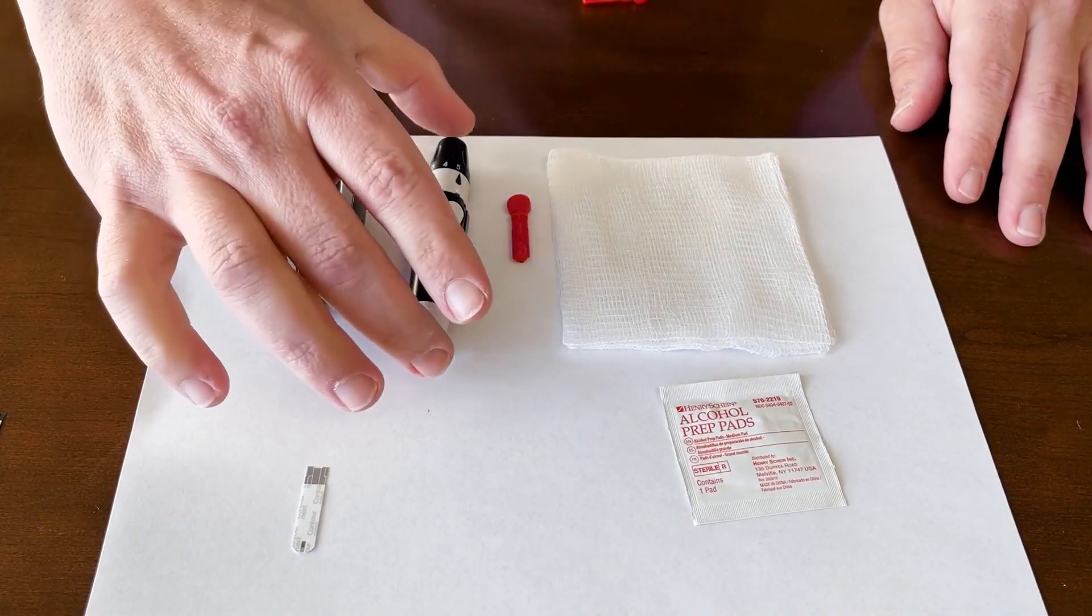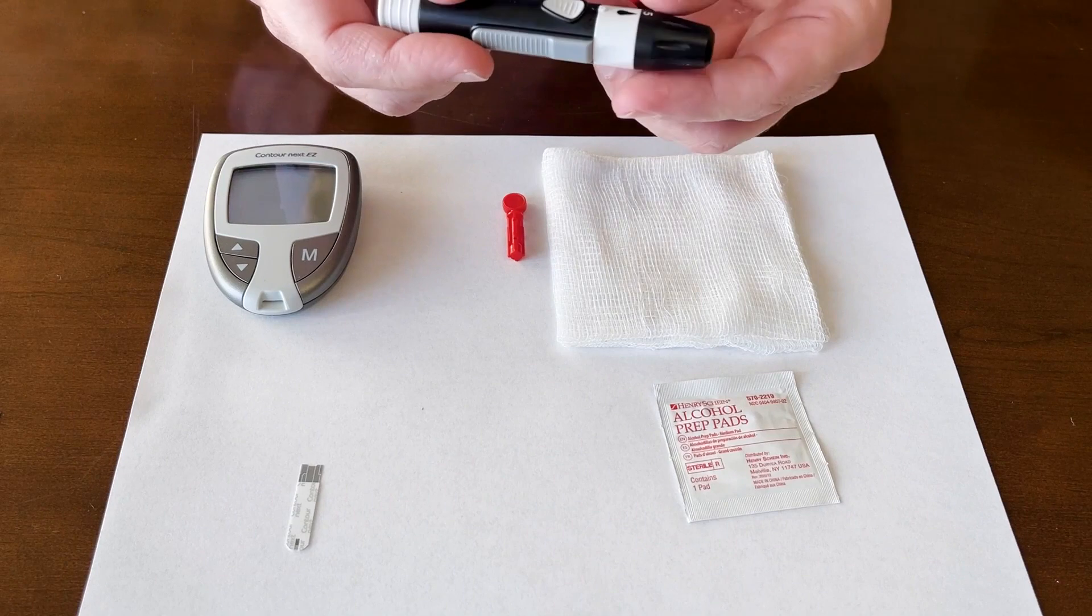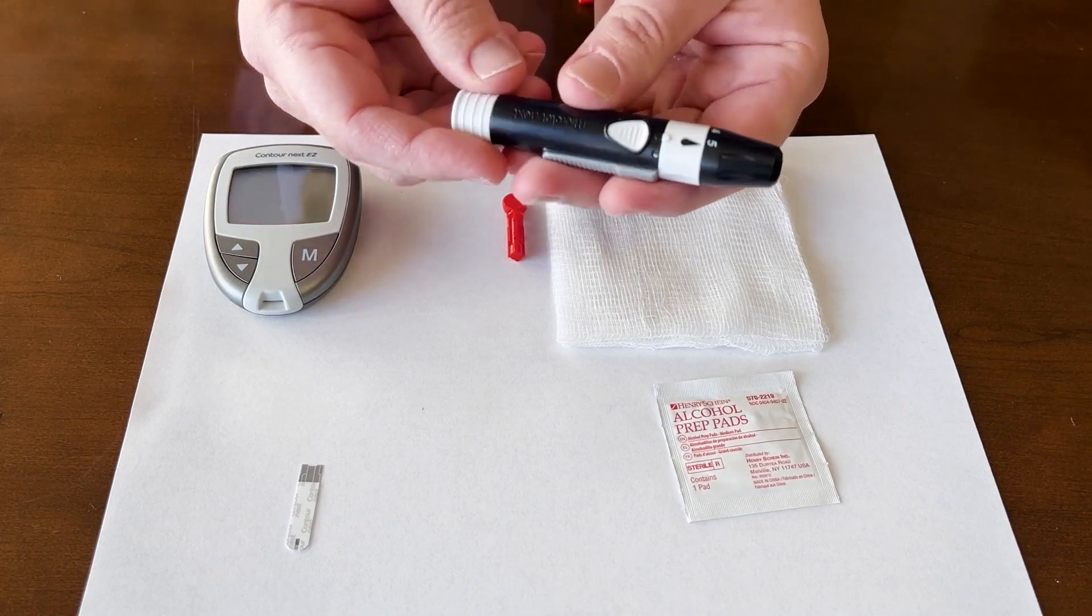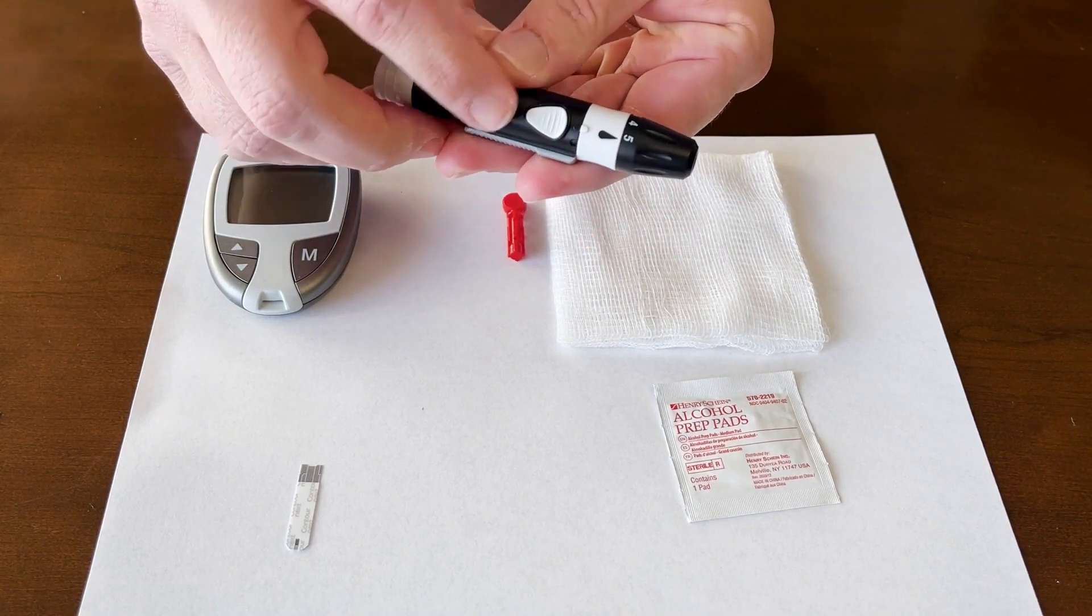First what you do, we have our lancet device. I already have the lancet loaded into the device. You do need to cock the device. The little button will come up.